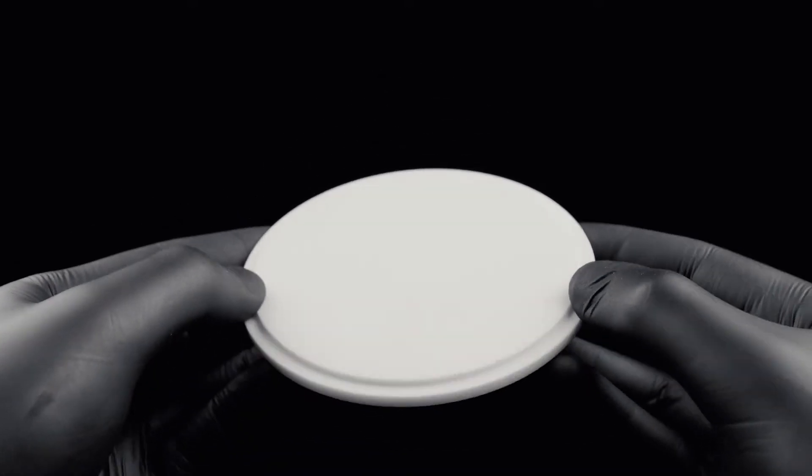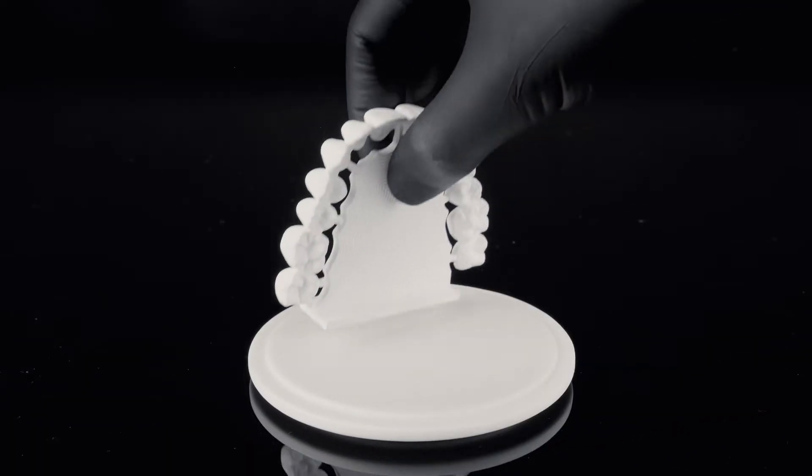When full arch bridges are sintered with a stabilizer, up to three can be positioned on a special ceramic plate.